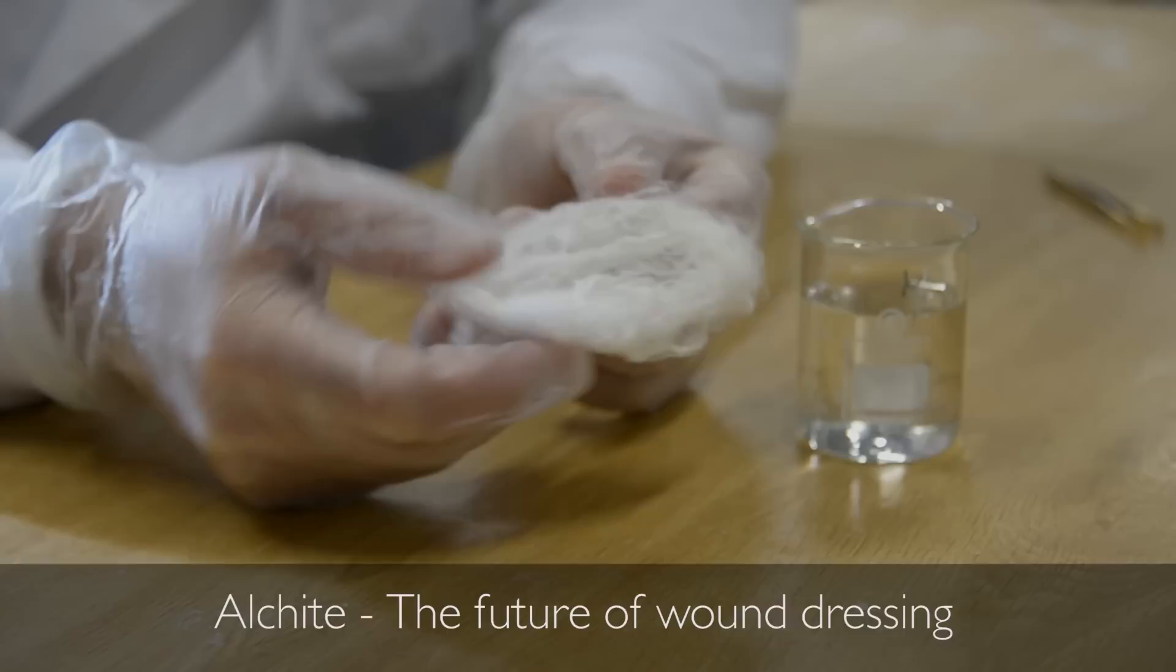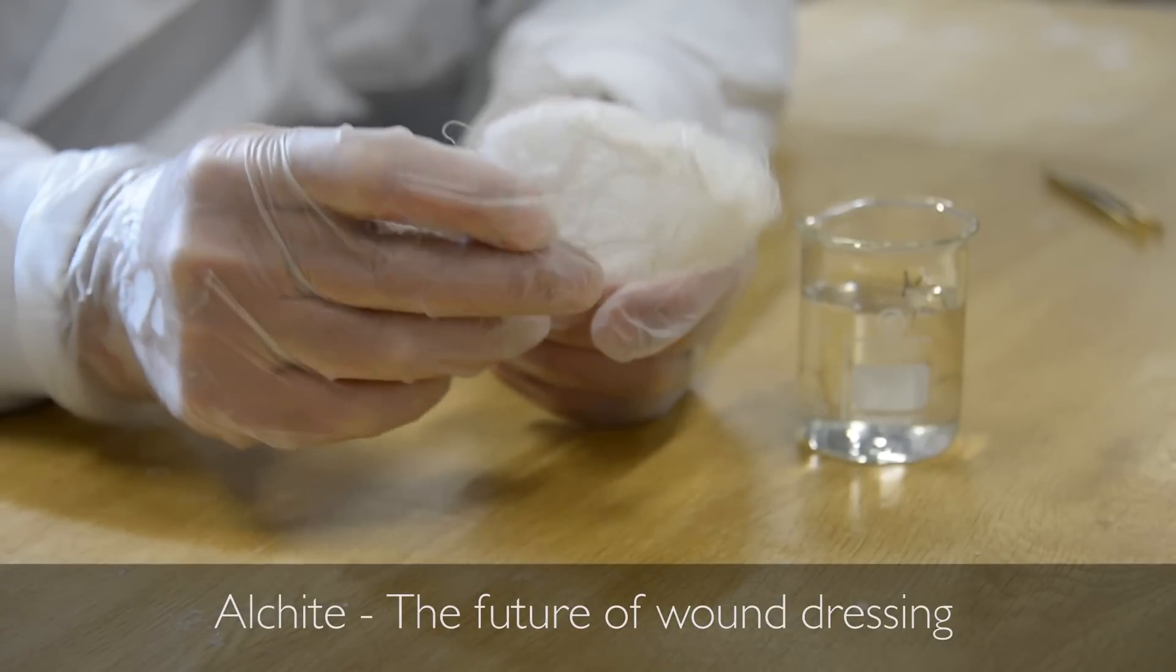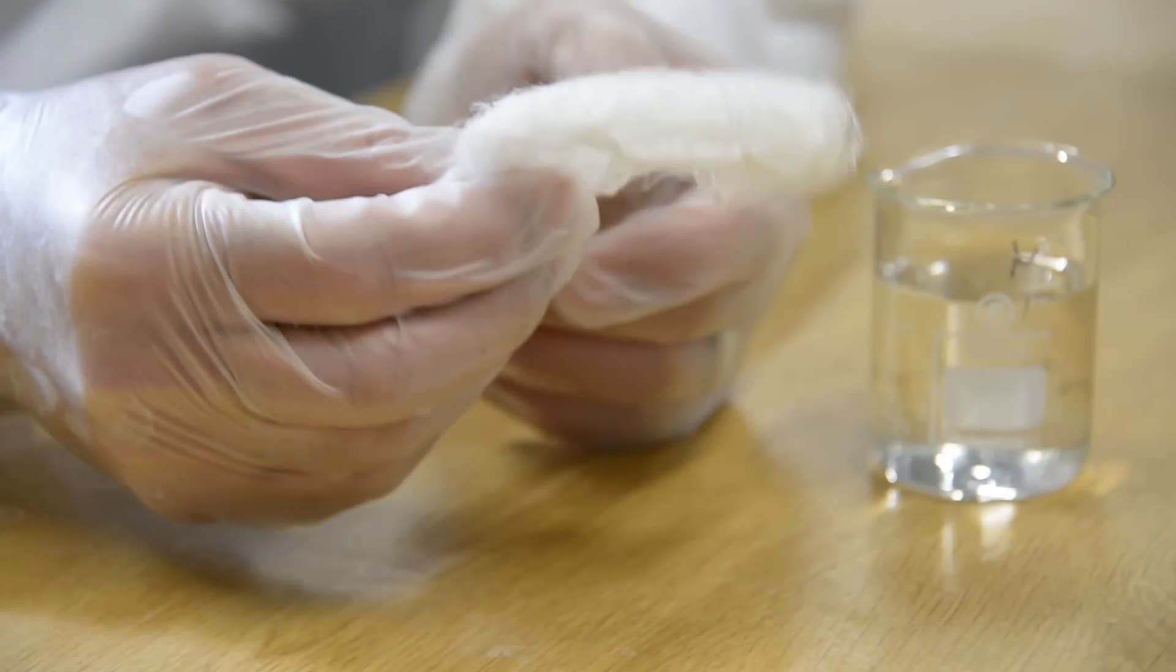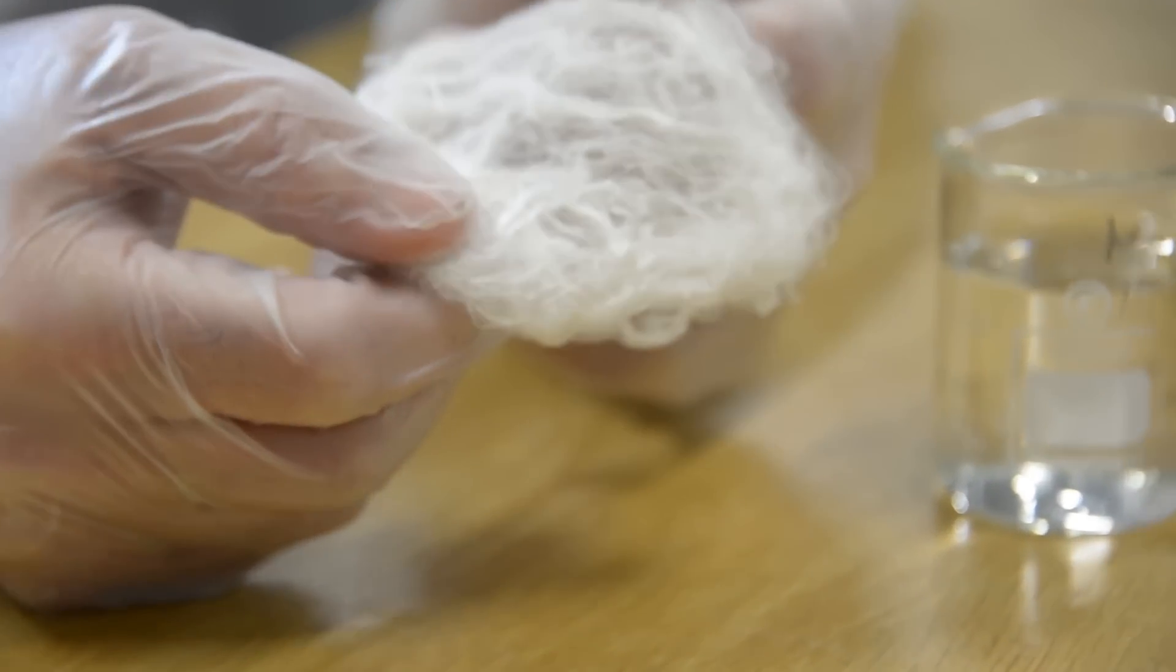This natural hybrid fibre has been developed at the University of Bolton. Being soft and highly flexible, it can be easily made into wound dressings.